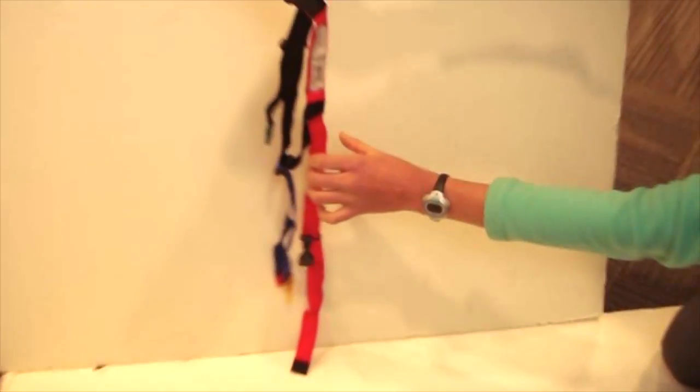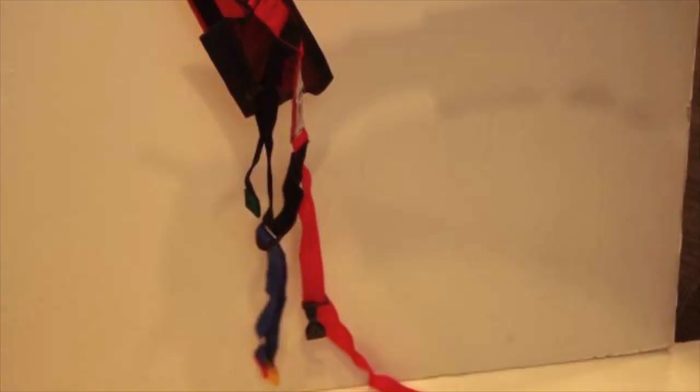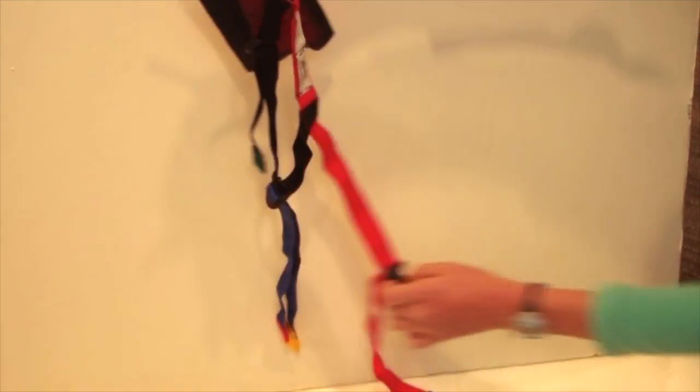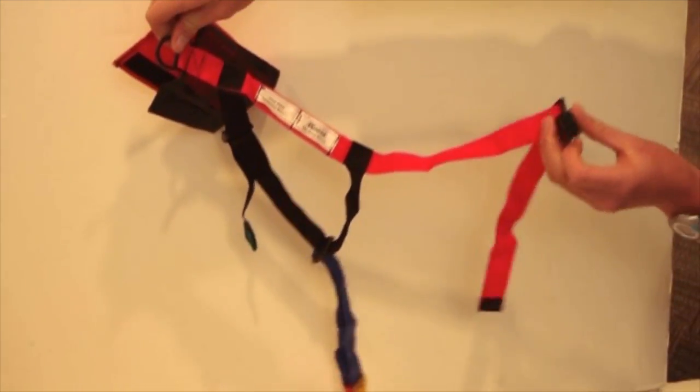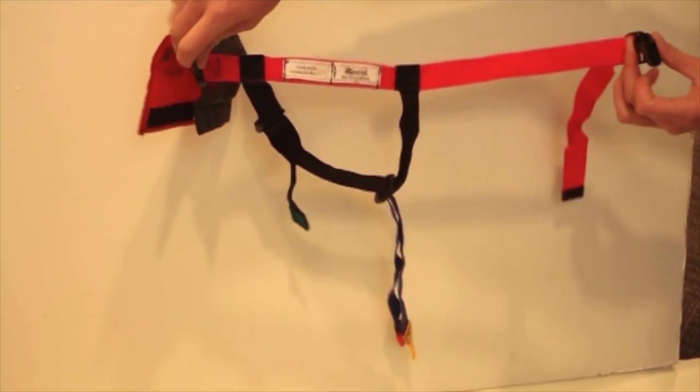The secret is to take it by the ring that's right by the envelope or the bag, and then the other end of the orange strap has the clip on it. When you hold those up, you can see that label that will orient you.